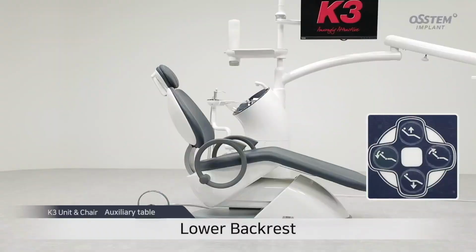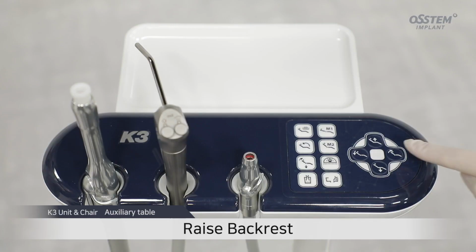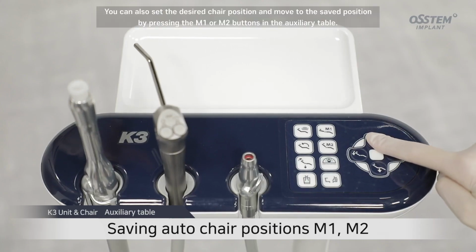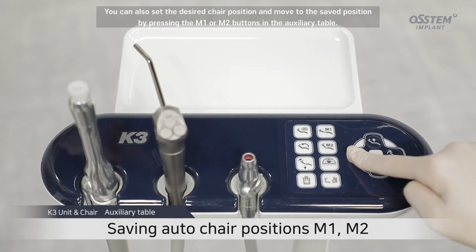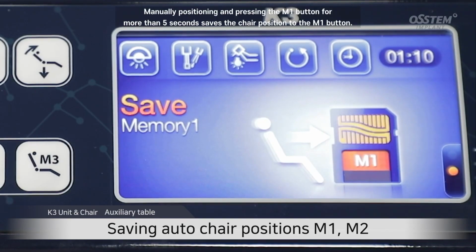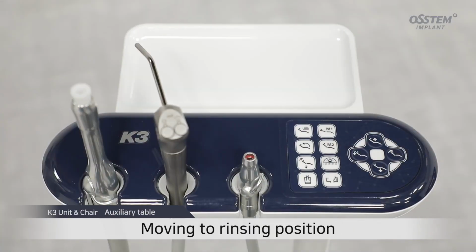Lower backrest. Raise backrest. You can also set the desired chair position and move to the saved position by pressing the M1 or M2 buttons on the auxiliary table. Manually positioning and pressing the M1 button for more than 5 seconds saves the chair position to the M1 button.